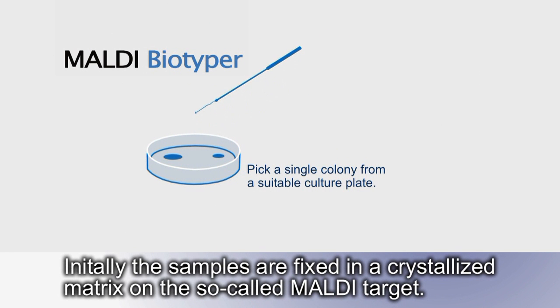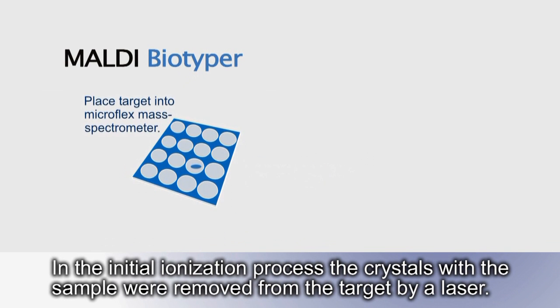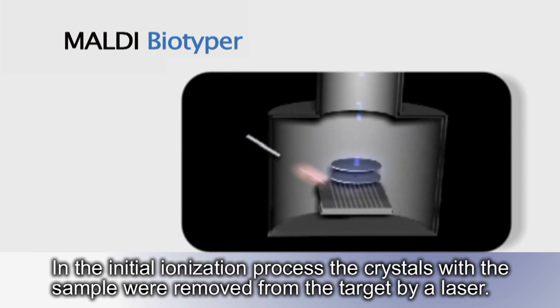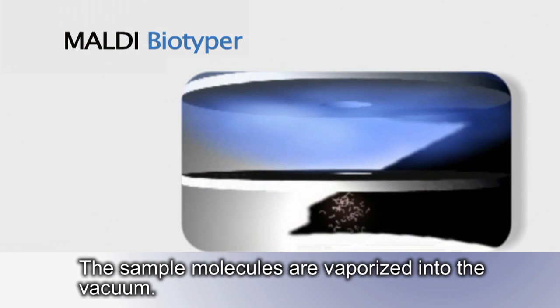Measuring the protein's mass by the Maldi TOF technology is a very fast process. Initially, the samples are fixed in a crystallized matrix on the so-called Maldi target. In the initial ionization process, the crystals with the sample are removed from the target by a laser. The sample molecules are vaporized into the vacuum.